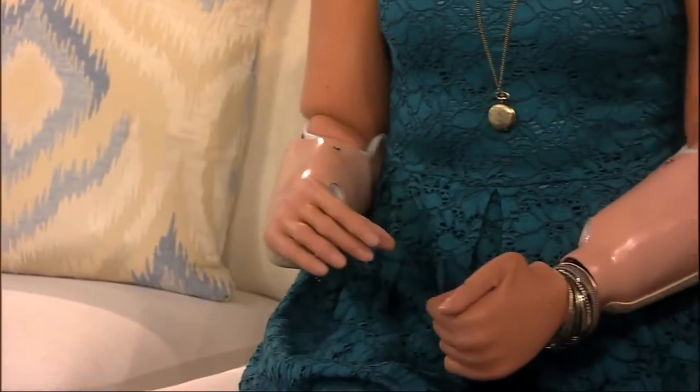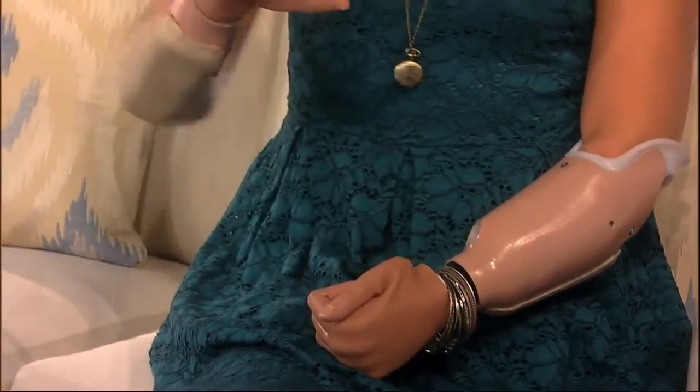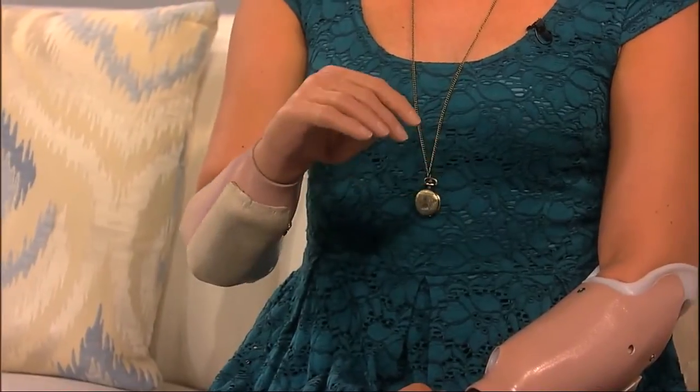The motion I do is bending my wrist backward and forward — it's called wrist flexion. When I bend my wrist backward, or my phantom wrist, because I don't have a wrist, but I still feel it there.